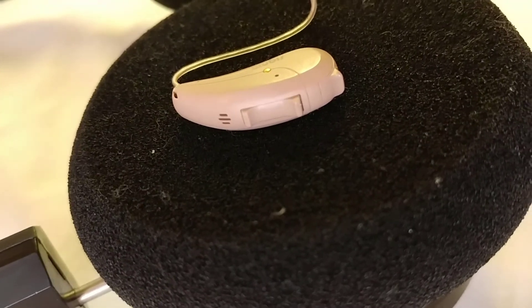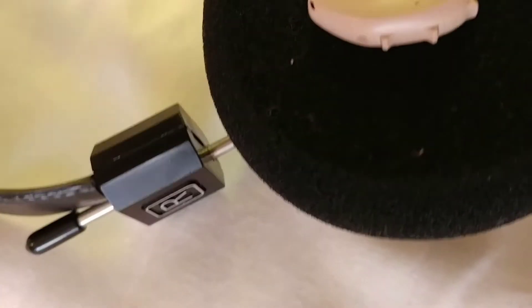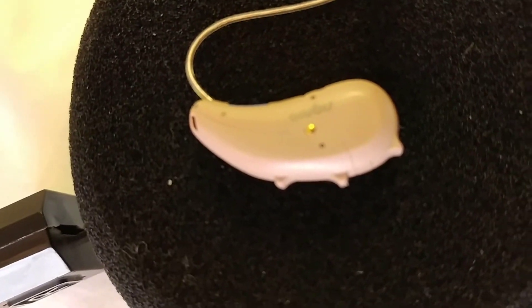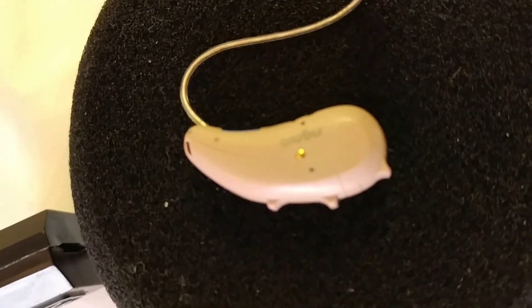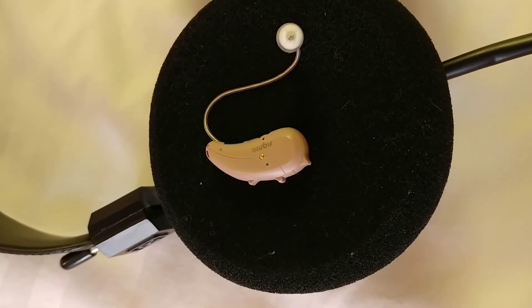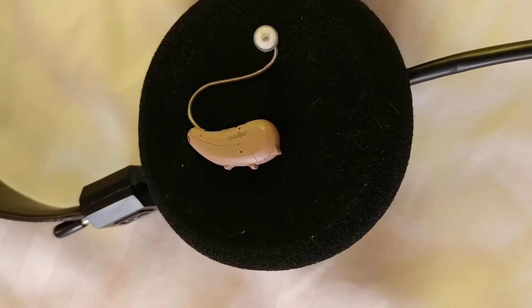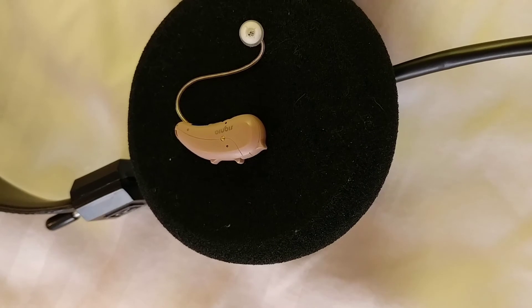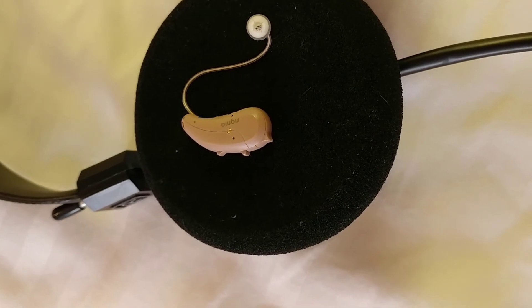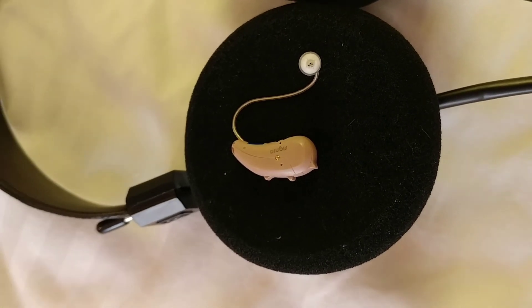But these are still even better, because now you have nothing guarding the sound from coming through — they simply sit on top. They allow that full soundstage to come through, and you now have just a straight cushion for allowing the sound to come in. So these seem to be the ideal headset: this nice, flat, clear surface for listening to music with behind-the-ear hearing aids. And Grado is a great headphone in general. For those with great hearing, the SR-125E is a really solid choice anyway, and even better for those who have moderate hearing loss to use with hearing aids.